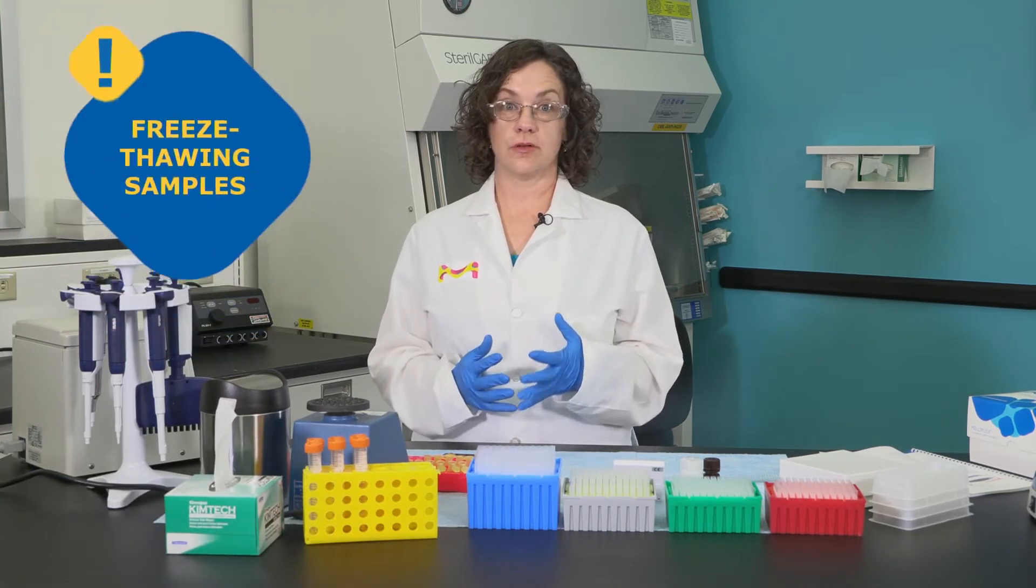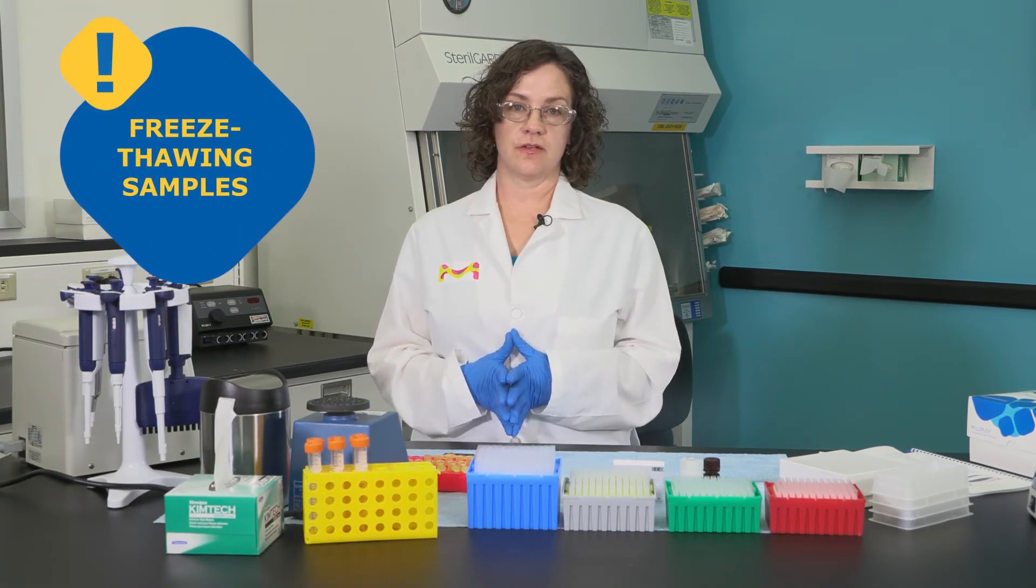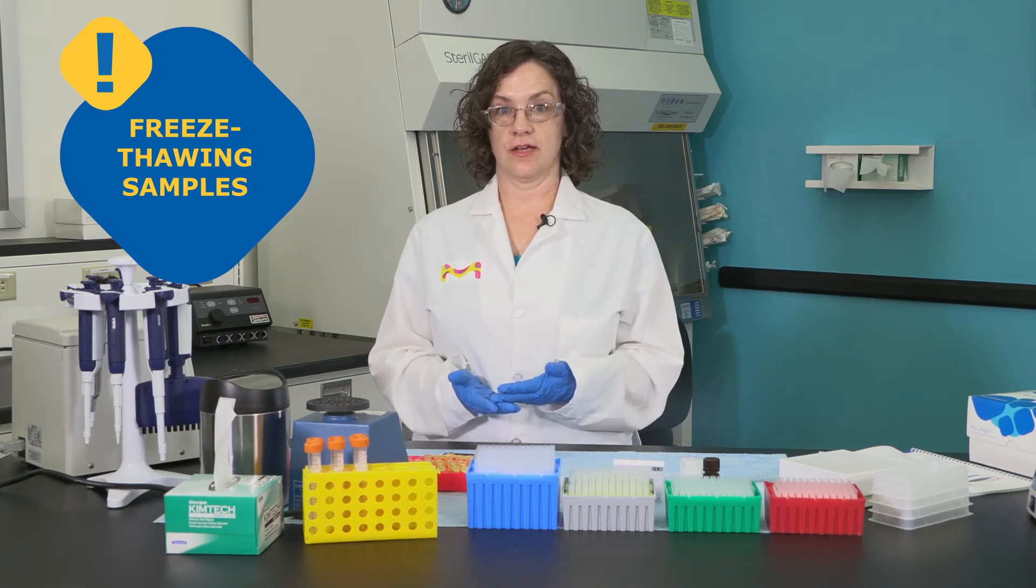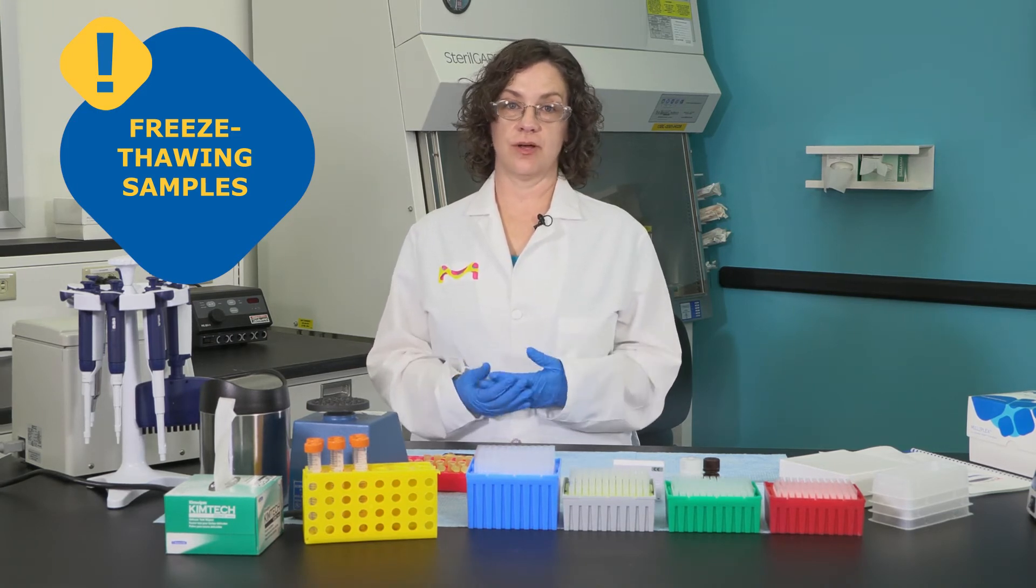It is important to avoid multiple freeze-thaw cycles on your samples. Most milliplex protocols recommend less than two freeze-thaw cycles to ensure accurate sample concentrations.